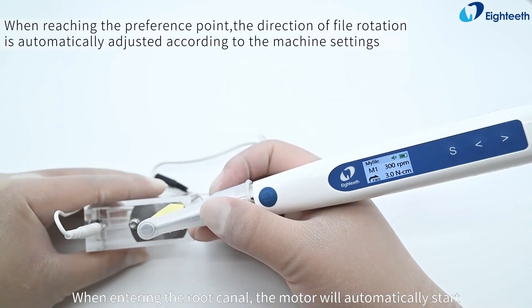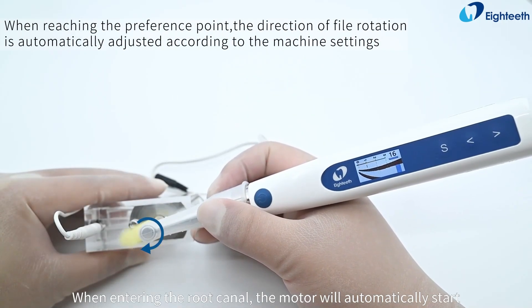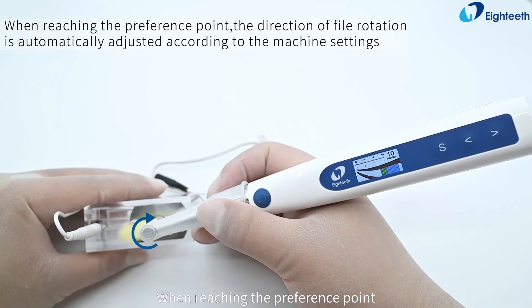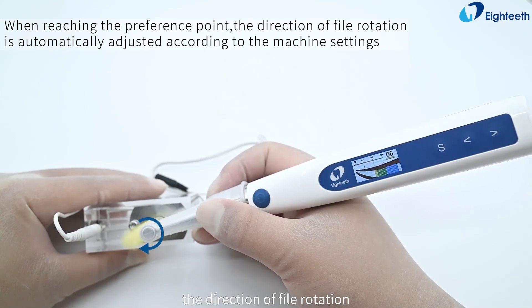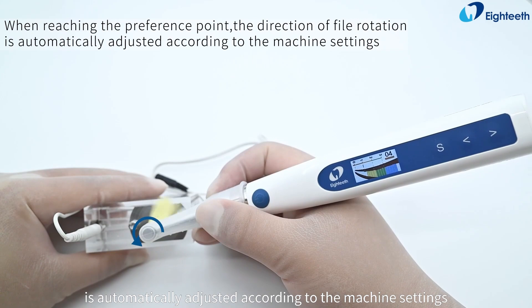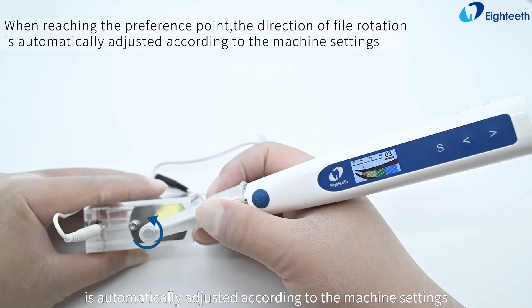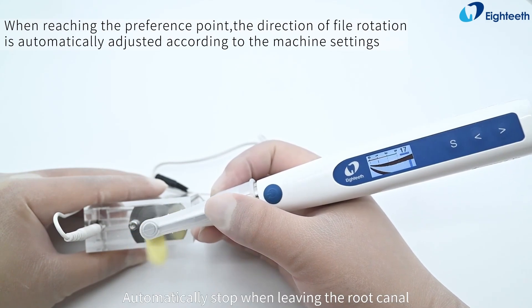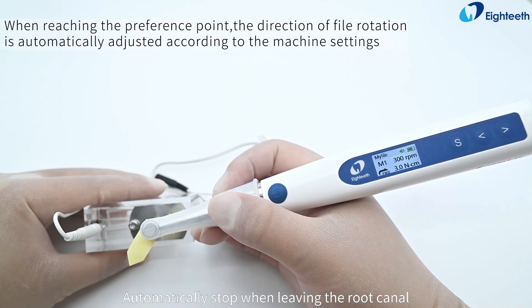When entering the root canal, the motor will automatically start. When reaching the preference point, the direction of file rotation is automatically adjusted according to the machine settings, and the device will automatically stop when leaving the root canal.